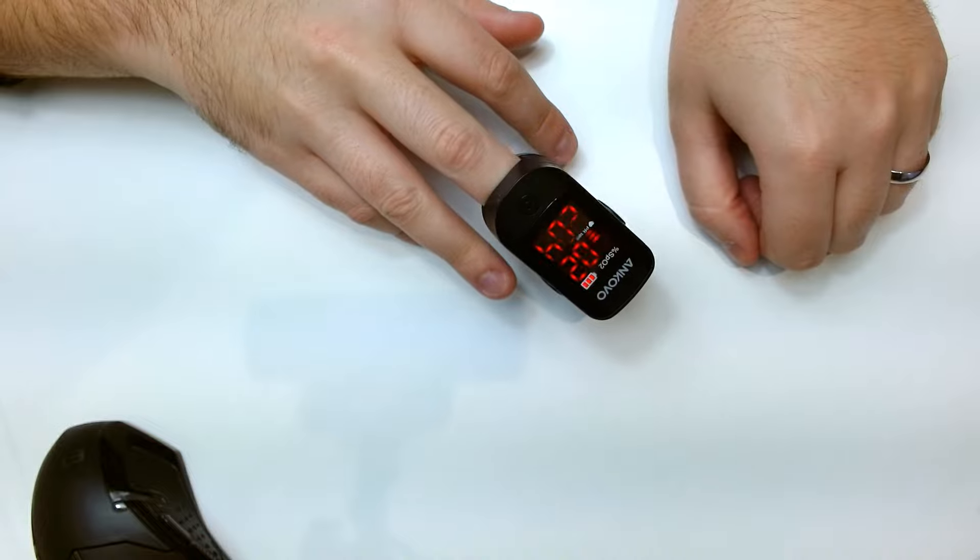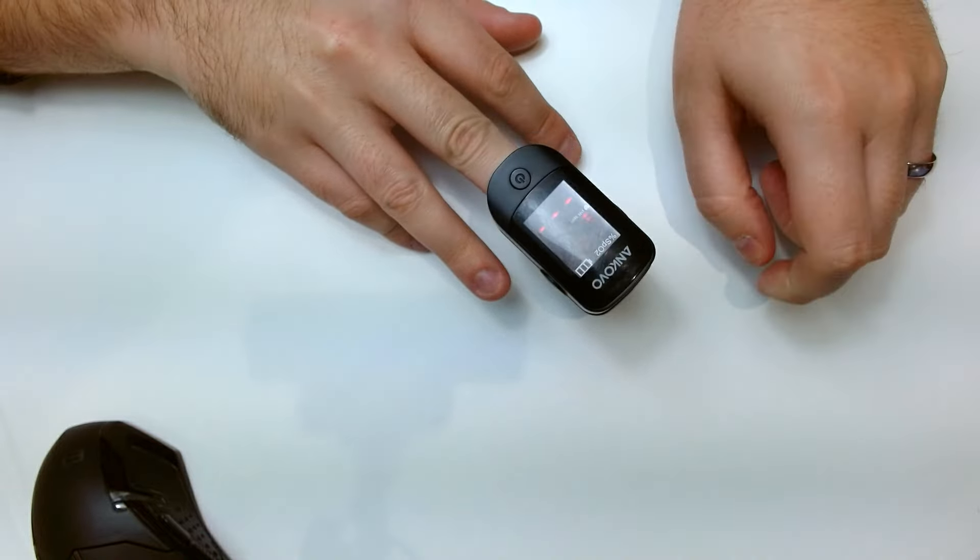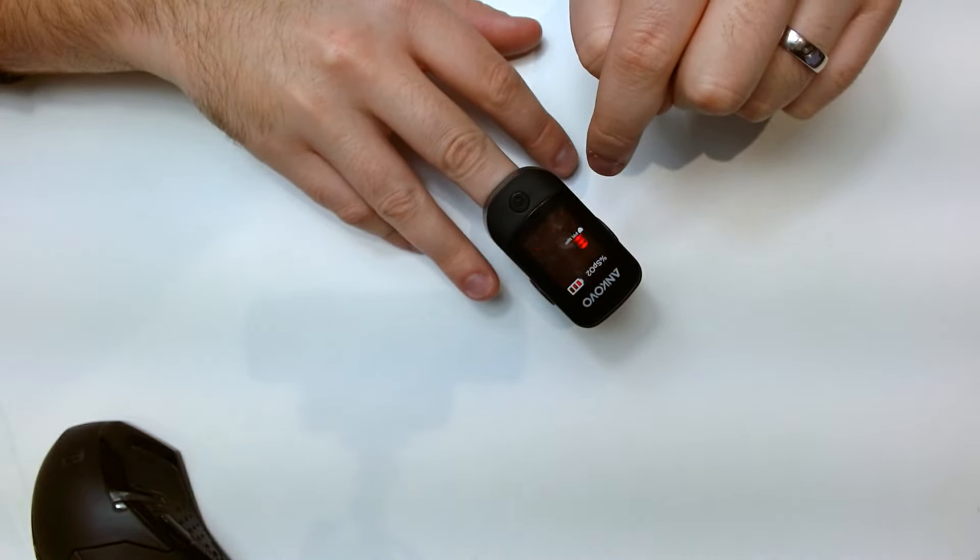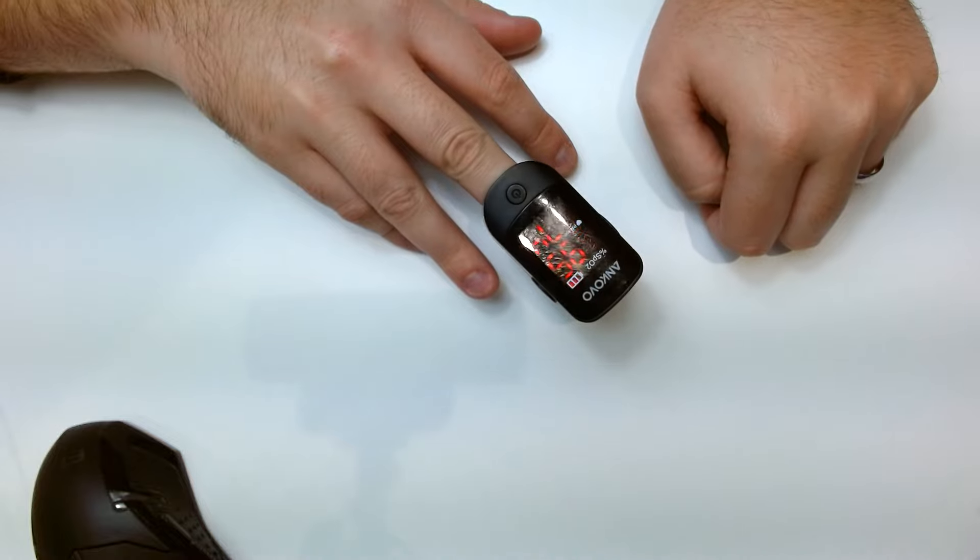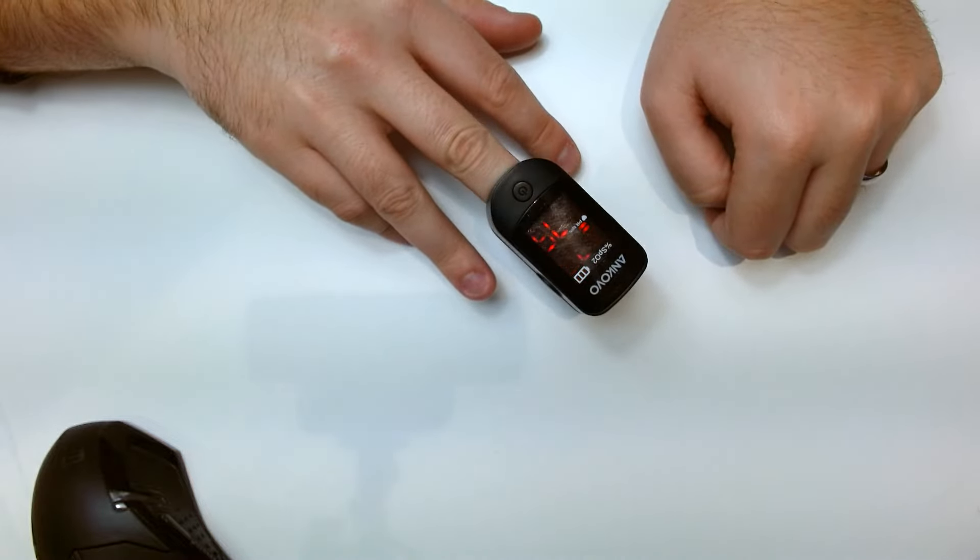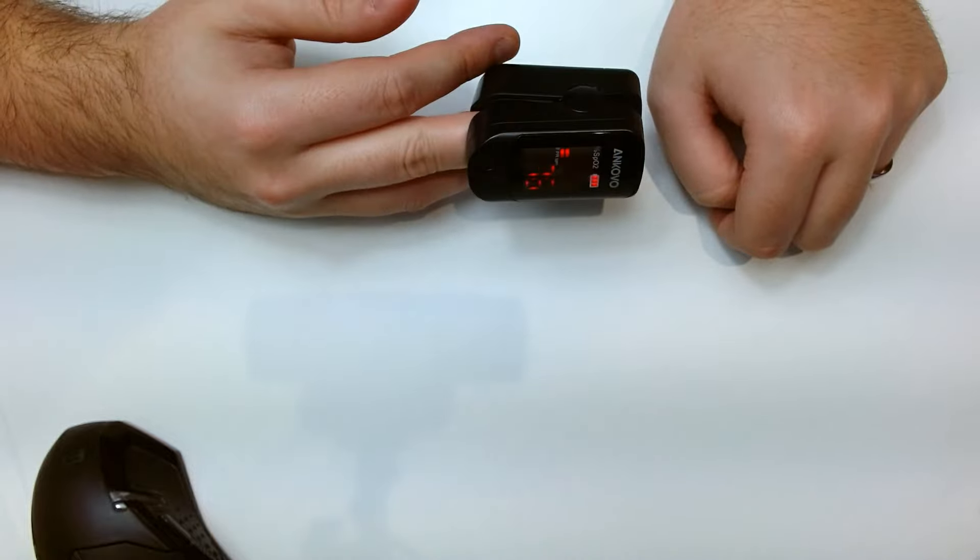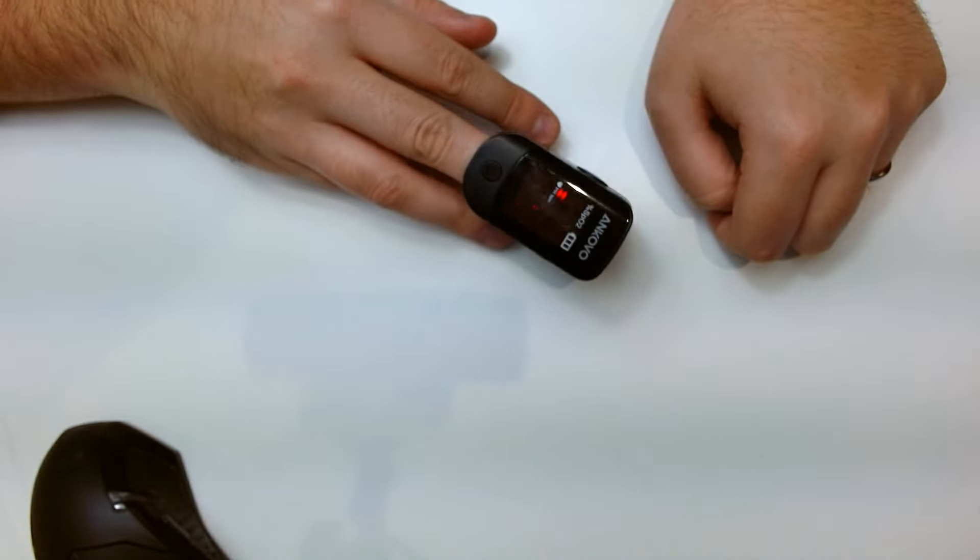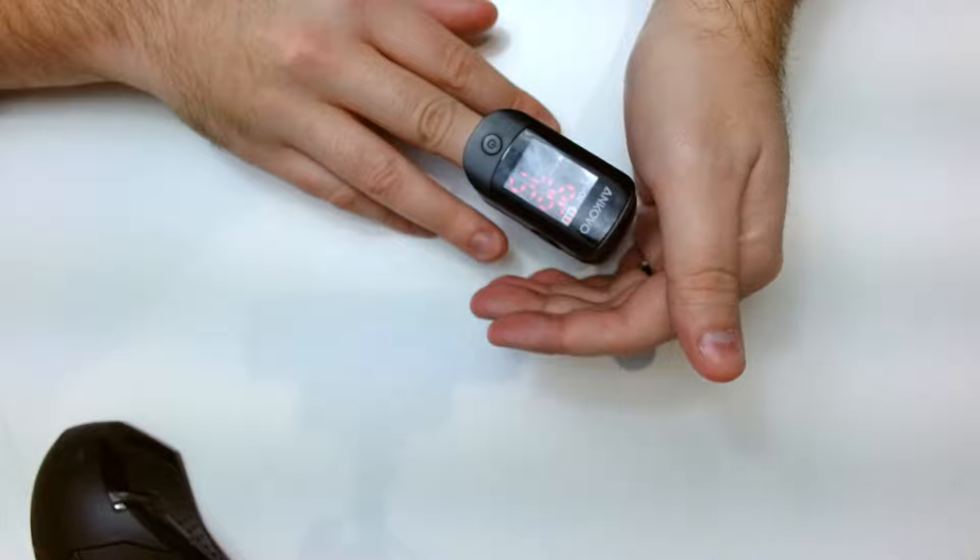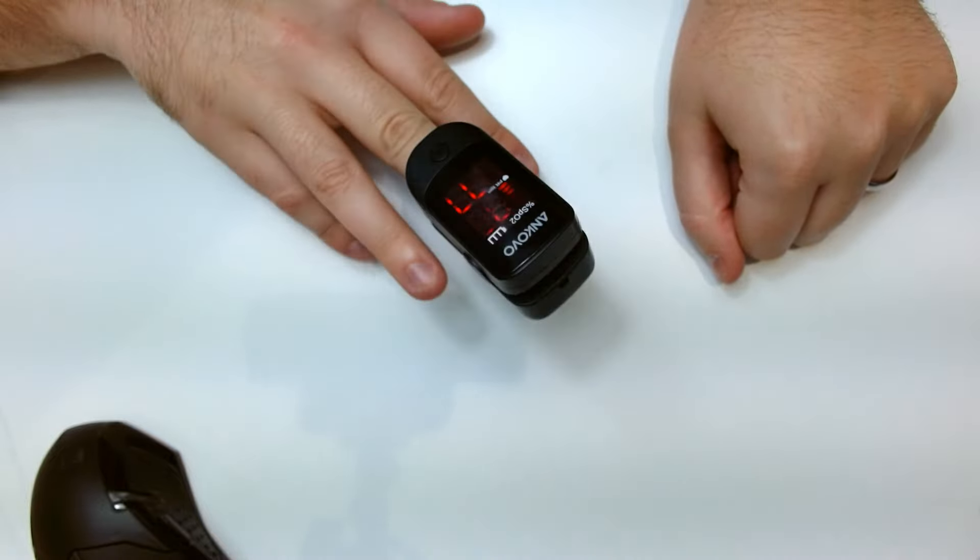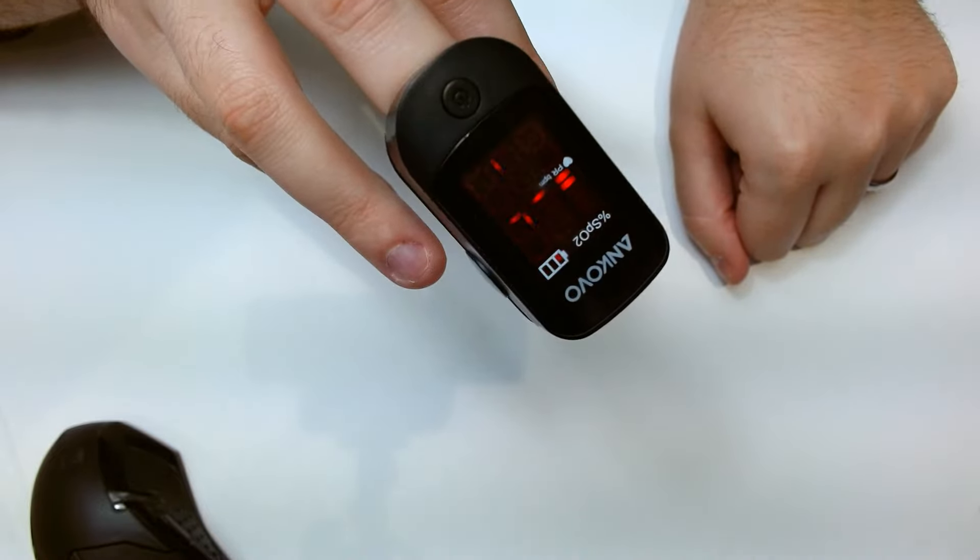I'm not sure if it shows in the light, there you go. So the numbers will start calculating and I know on this screen you can see flickering but it's actually not flickering. I think that's the effect of my camera and the light on it.